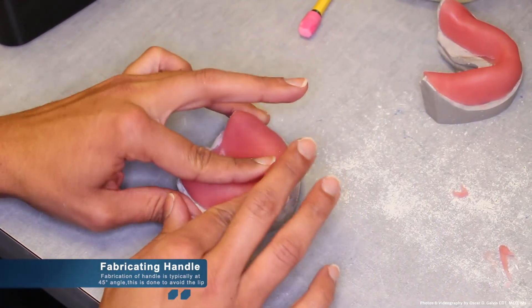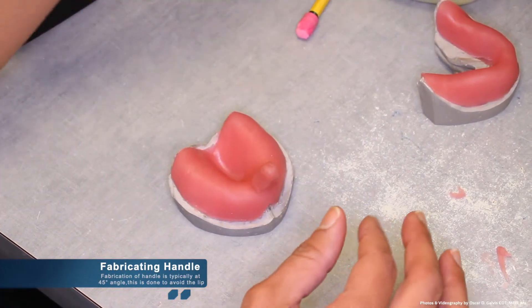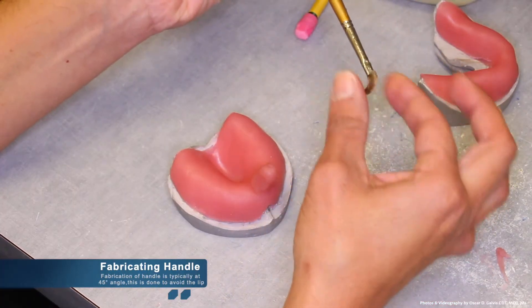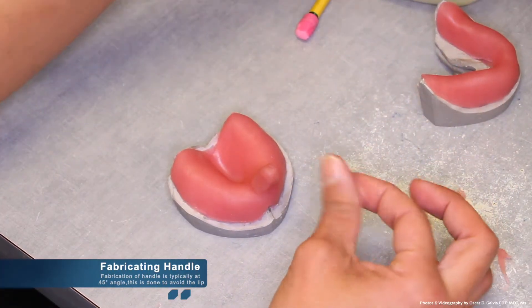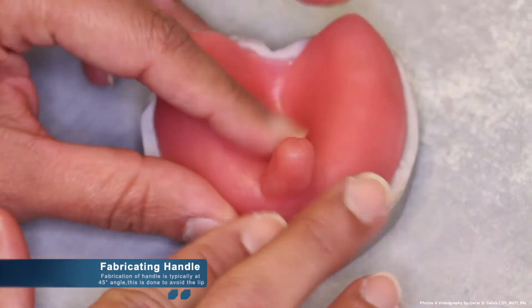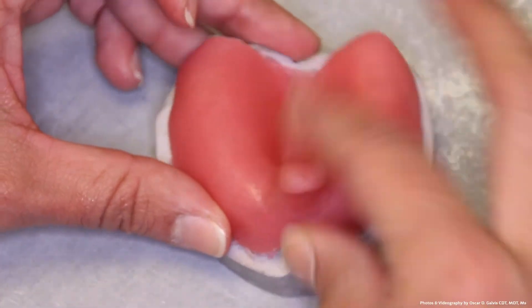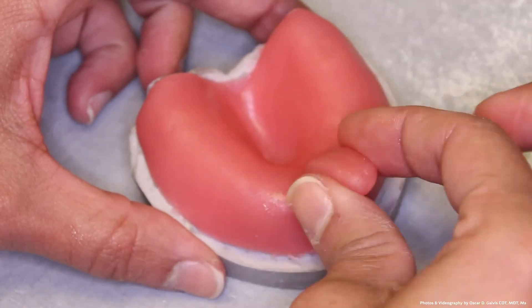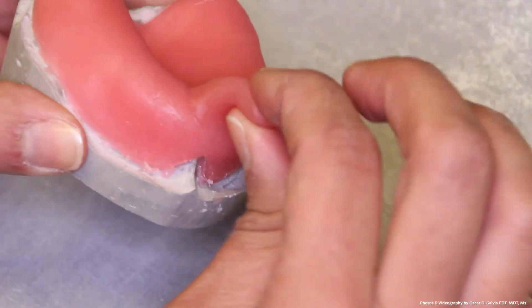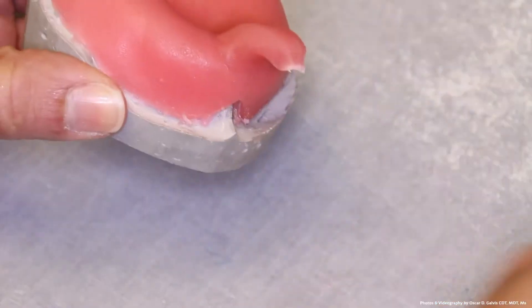The next step is fabricating the handle. Fabrication of the handle is typically at about a 45 degree angle. This is done to avoid the patient's lip. The handle facilitates the use of the custom tray and makes it easy for the clinician to take the impression and retrieve it once the impression is complete.